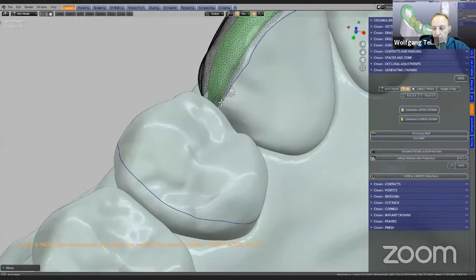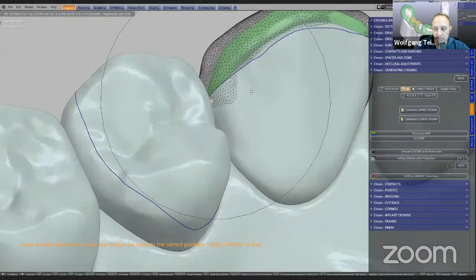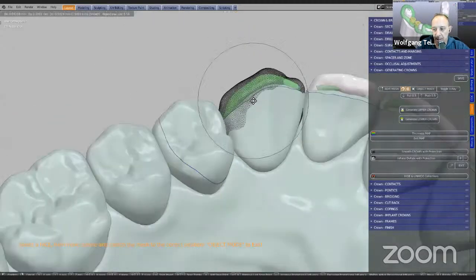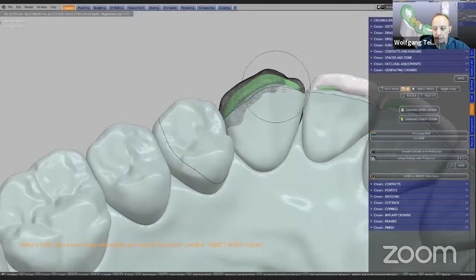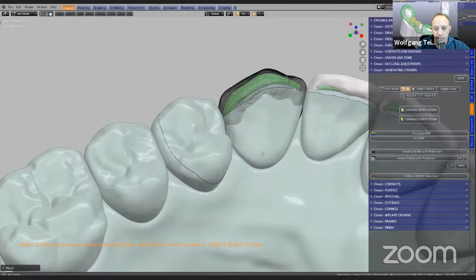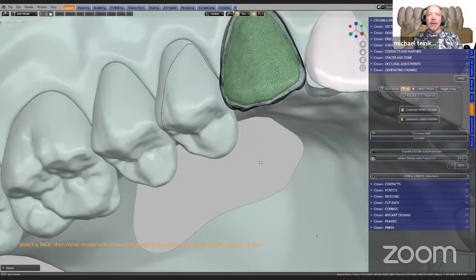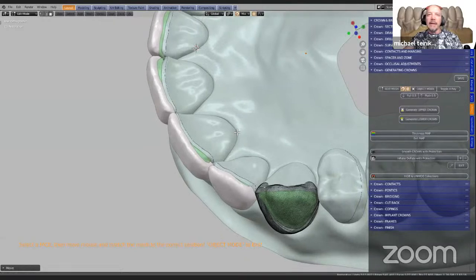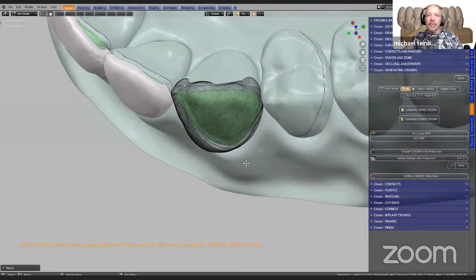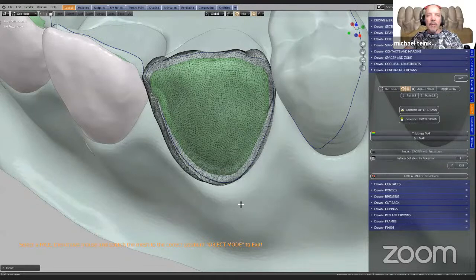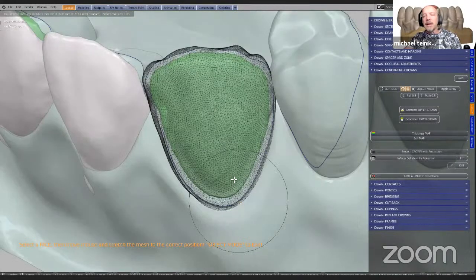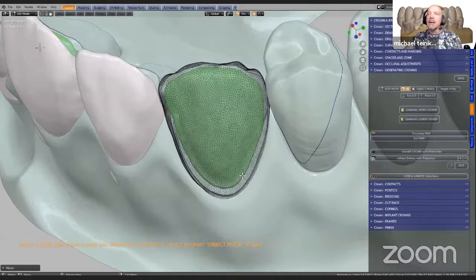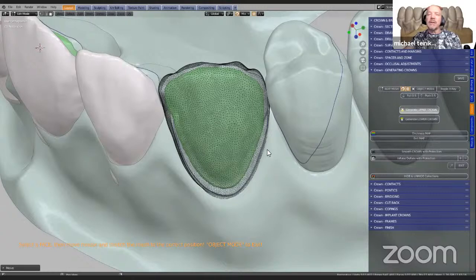Like I mentioned earlier on, Michael is just pulling the mesh over the pencil line. And then the margin will be fused to the actual tooth library. That's looking quite good. Then what we're going to do is generate this into a veneer. Just pull this out like this — the reason also why I'm pulling it out is because we want to get a good emergence profile happening. So with that done, we're going to click on generate crown and just wait for it.